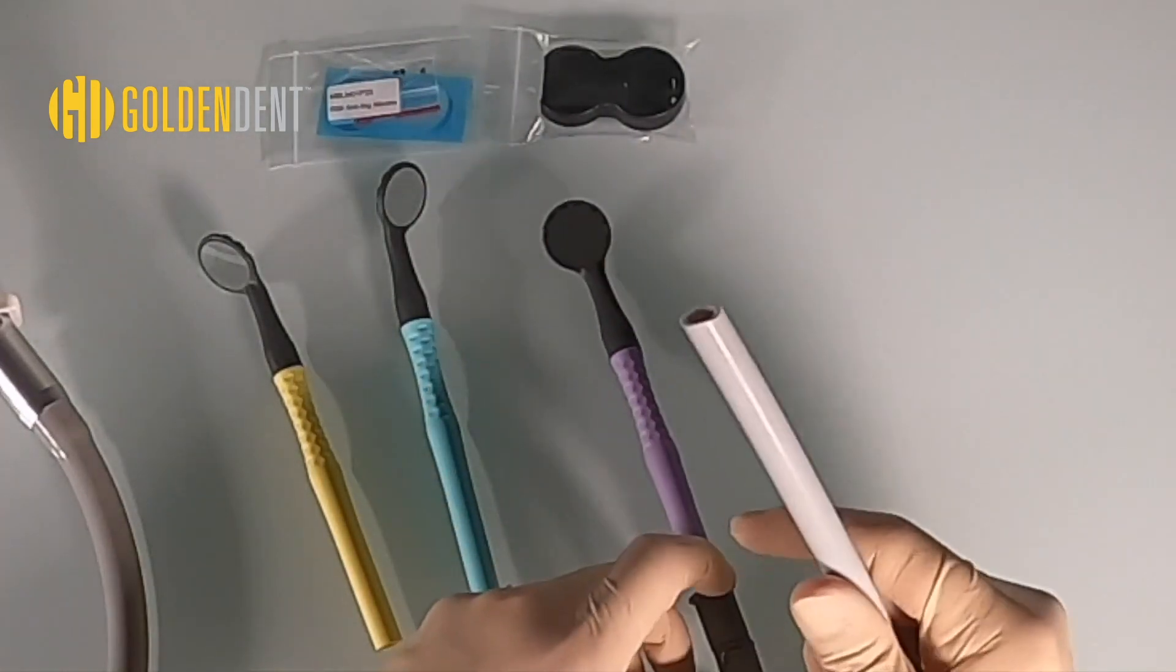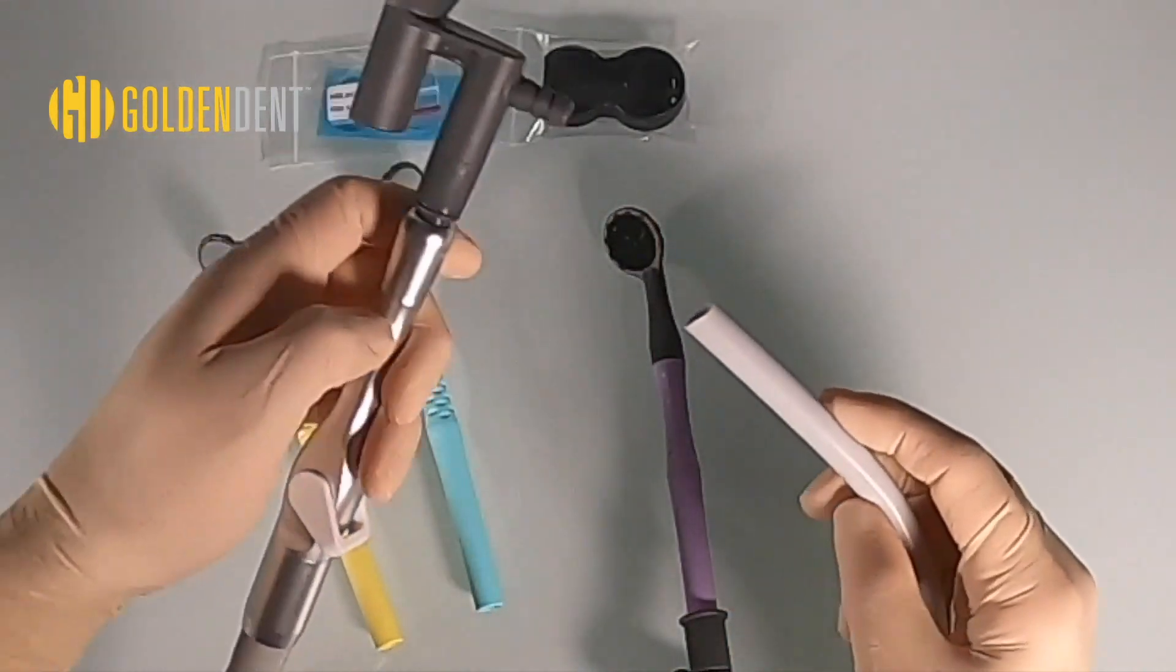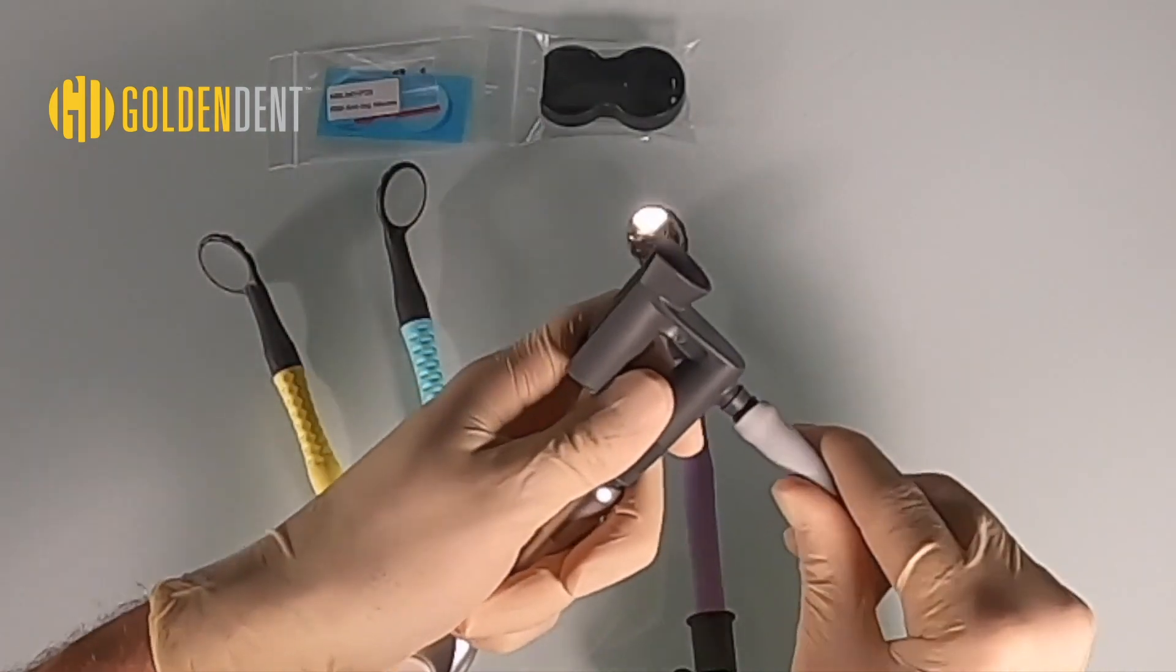The other end of the tubing connects to the HVE adapter and the mirror can slide conveniently into the holder.